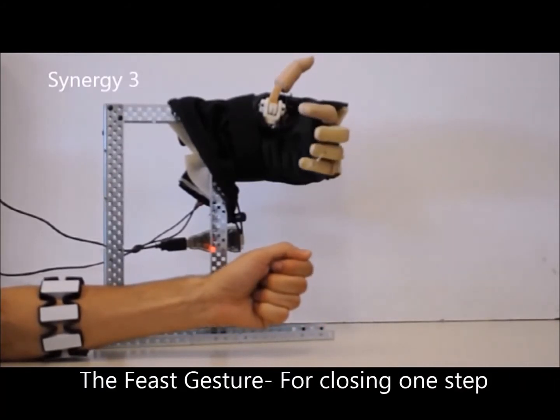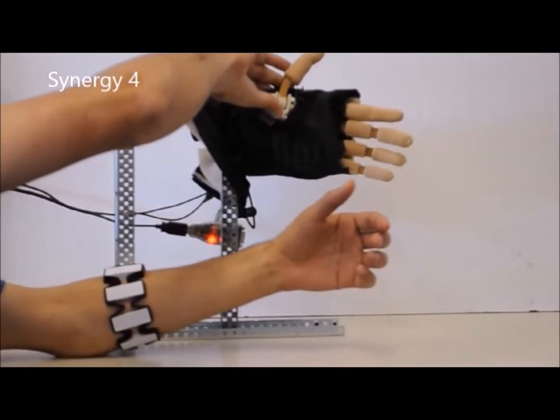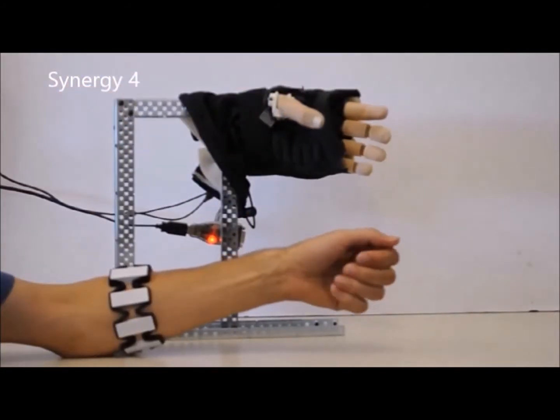Based on this database and a significant amount of experiments, we succeeded to extract five grasping synergies that are able to achieve these 33 grasped forms.